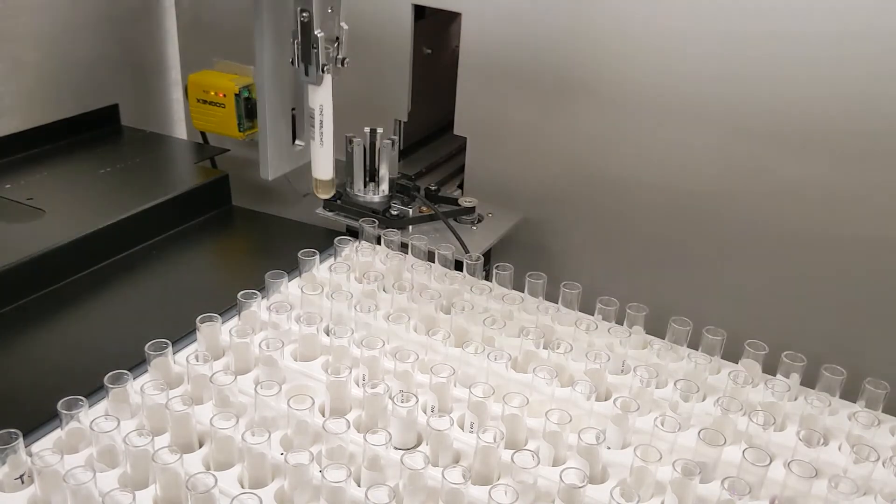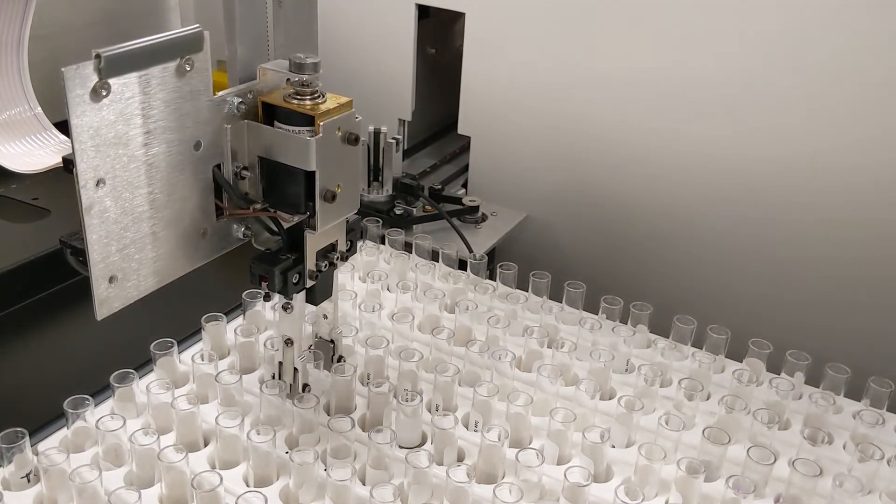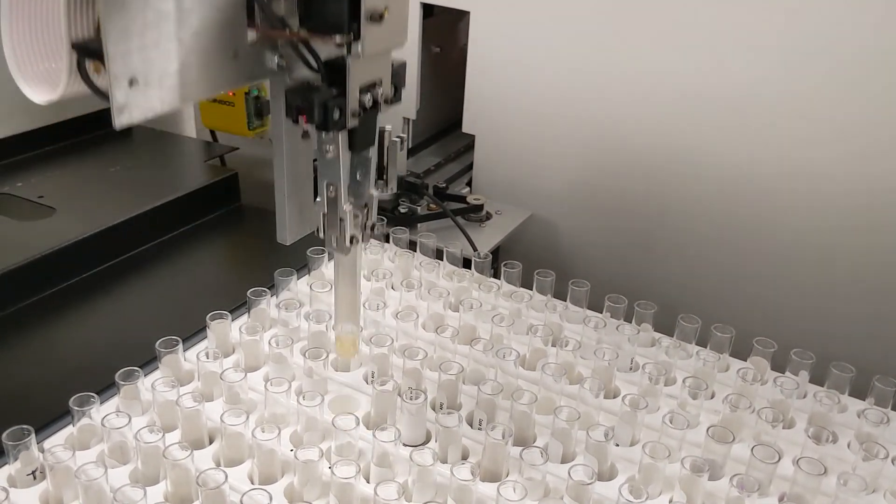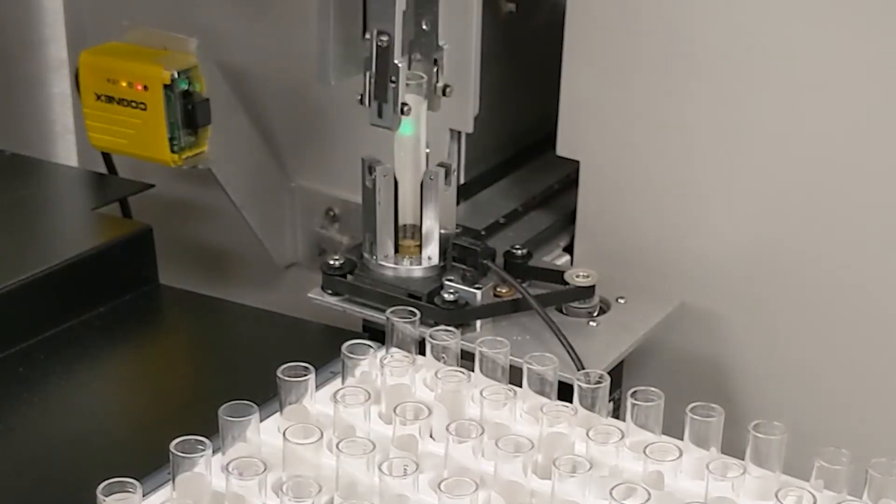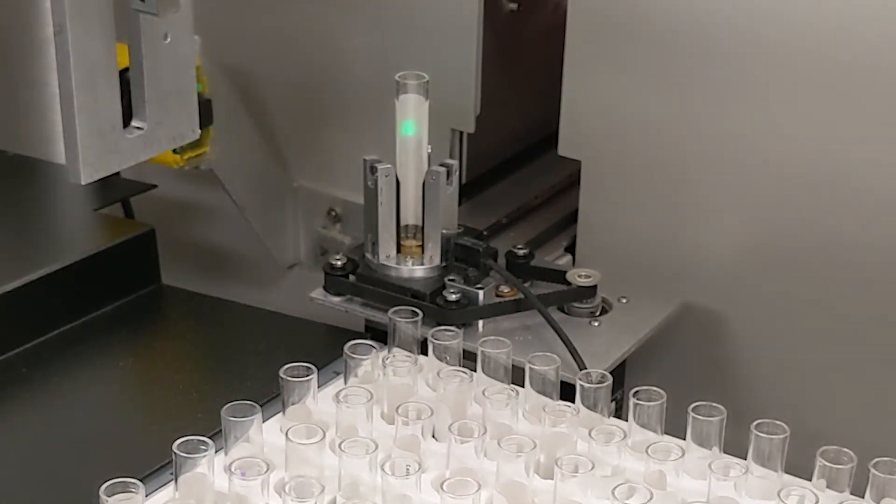The Nexus Max tube handler provides round-trip transfers of patient samples to the Nexus for automated analysis, leaving the technician free to do other things.